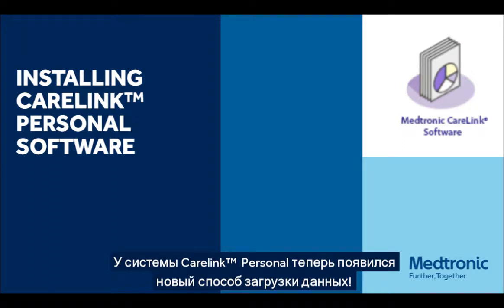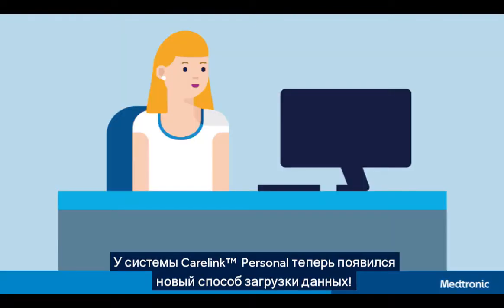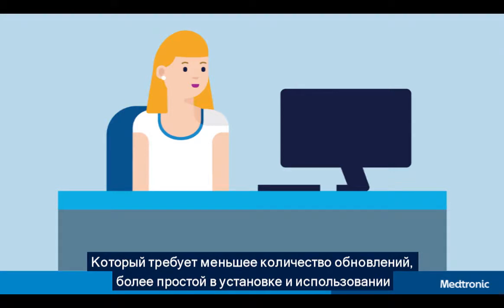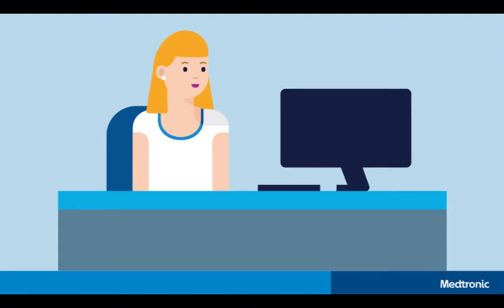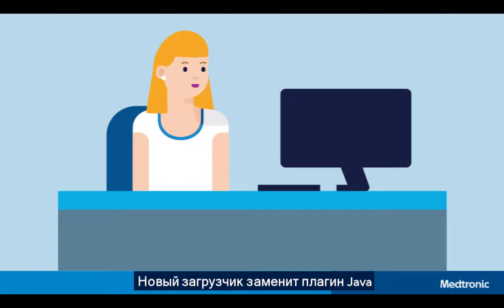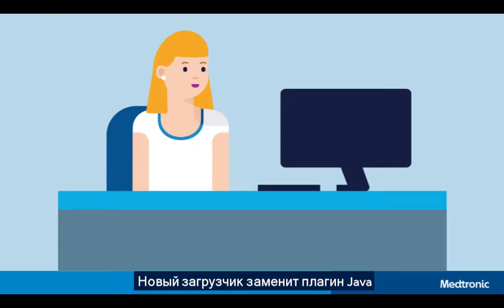The CareLink Personal system now has a new way of uploading. This improved experience requires fewer updates and is easier to set up and use. The new uploader replaces the old method which required the use of Java.